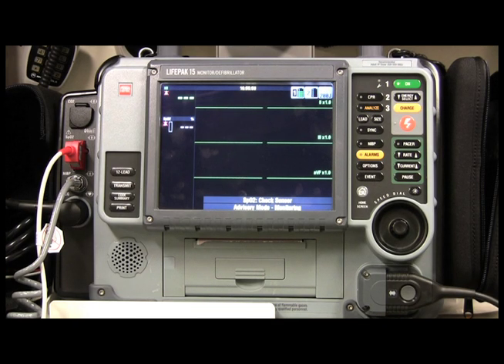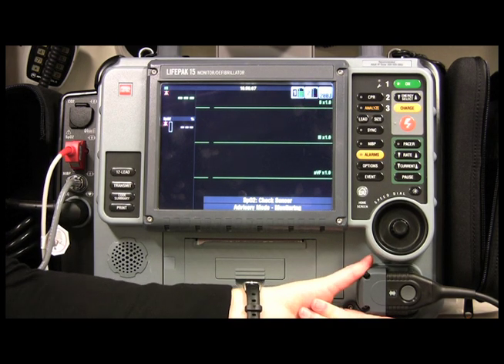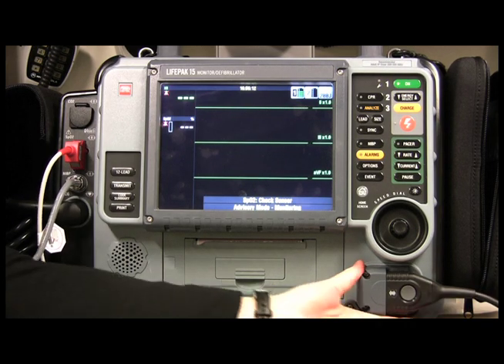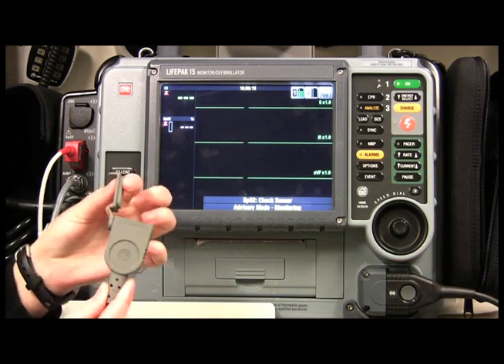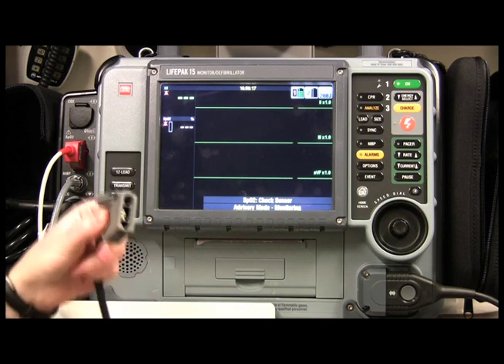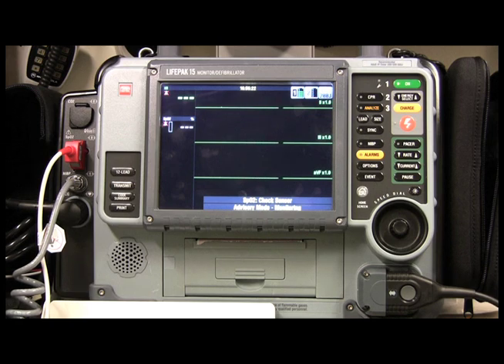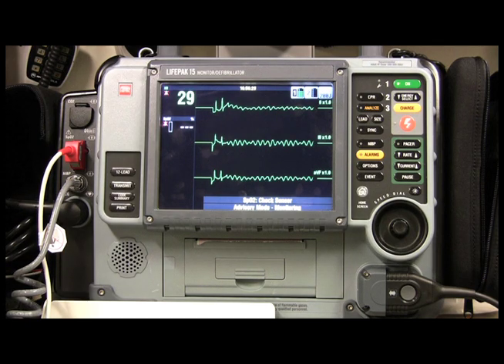So let's say you have a cardiac arrest and you need to hook the patient up to the pads. This right here is the cord that you want to use for the pads. The end looks just like this. You just take this off and this end goes into the pads. So as I'm doing this, hooking up the pads and placing them on the patient, we're seeing a shockable rhythm.